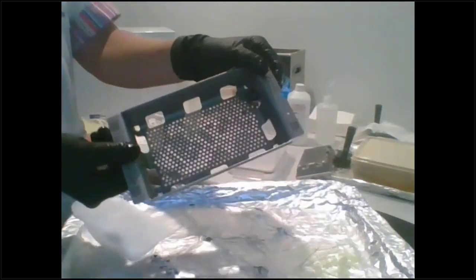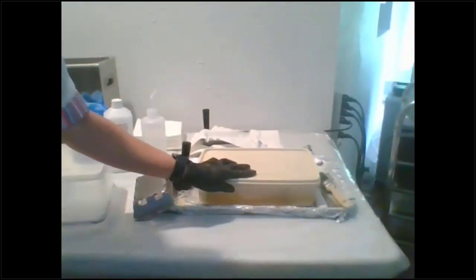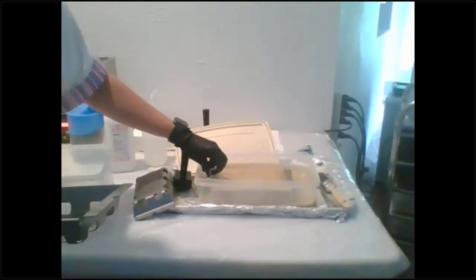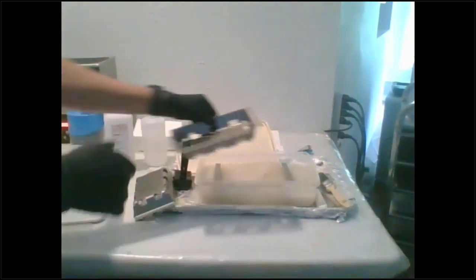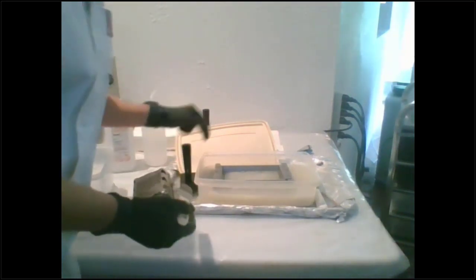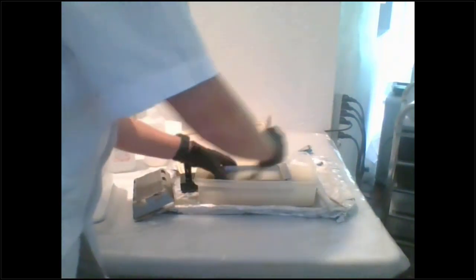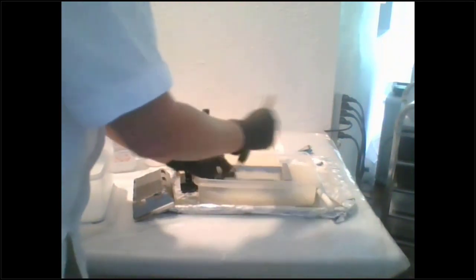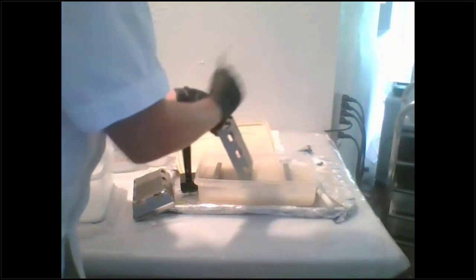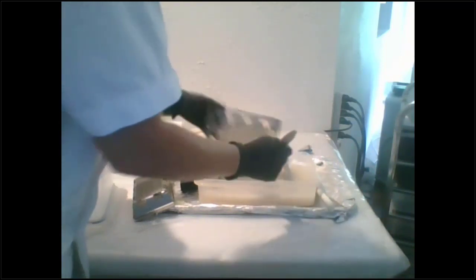My build platform is already clean. I'm just going to put it in this Tupperware container. We actually give a stand here in case you do need to punch it, and I have a Tupperware here. And then here's the stand, right? So I just put that in there, and we send out a bunch of little tools too. So we send out a punch tool, a little scraper, and a brush, right? And so now if I am doing something that's a fragile part, I just use this brush. This is all my old IPA, by the way. I use my IPA for like 100 times for all different types of things.